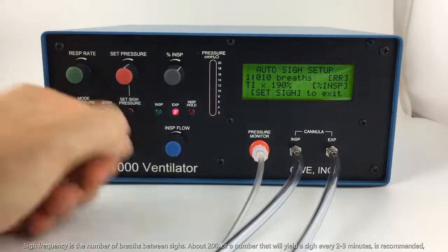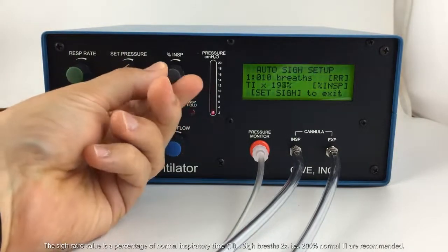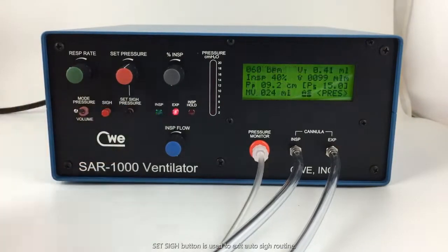In this case, we'll adjust it to 10. The sigh ratio value is a percentage of the inspiratory time. We'll set it to 200% of normal inspiration time. To exit, we press Set Sigh, and now you'll see every 10th breath is a sigh breath. That completes the instructions for the SAR 1000 small animal ventilator by CWE.